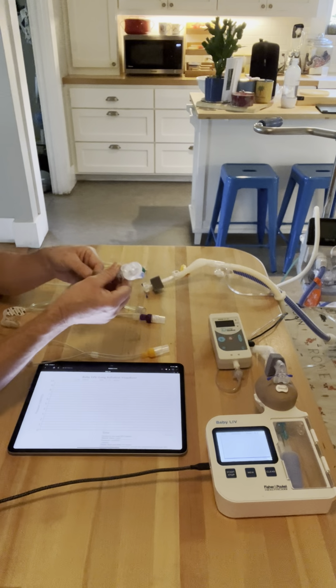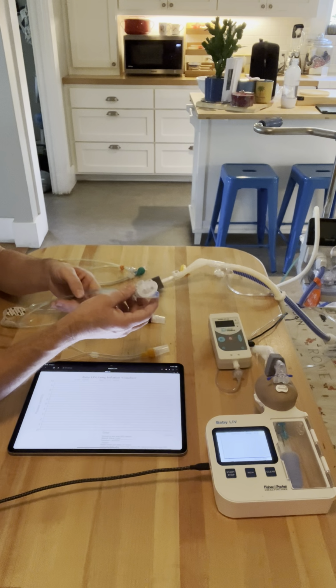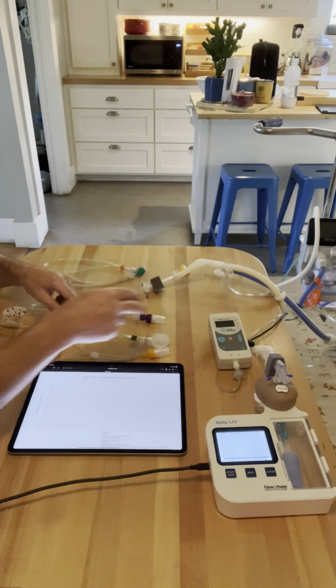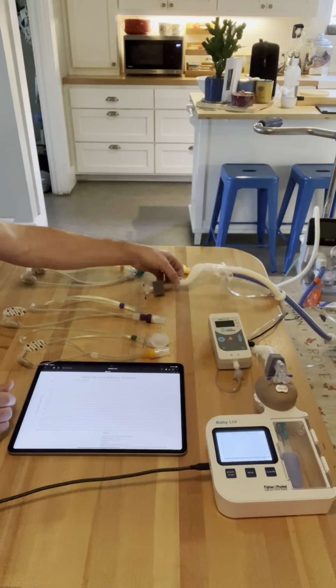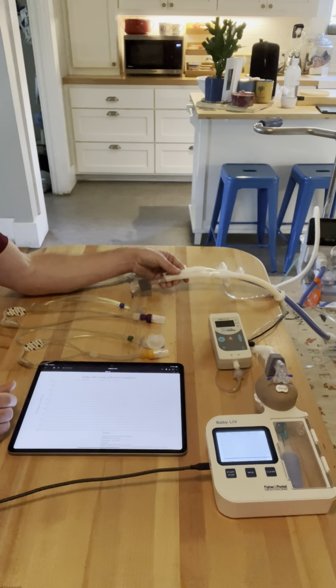A colleague of mine calls cannulated CPAP DPAP, dynamic positive airway pressure, meaning that it's not a constant and it brings in variability, which I like the sound of as well. So we'll call this CPAP and we'll call this DPAP just for this video.